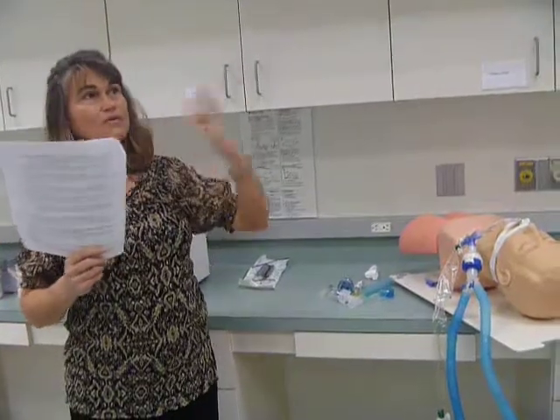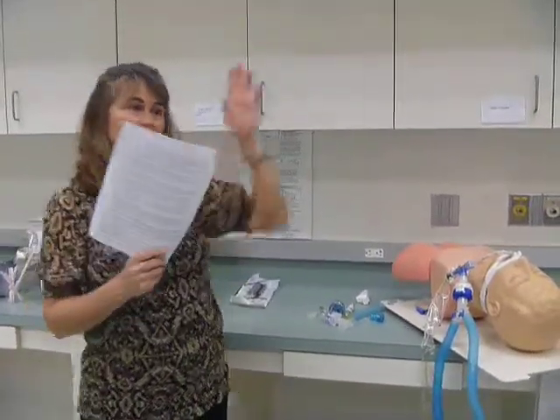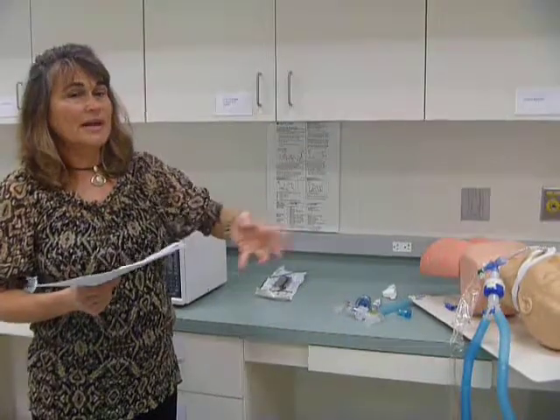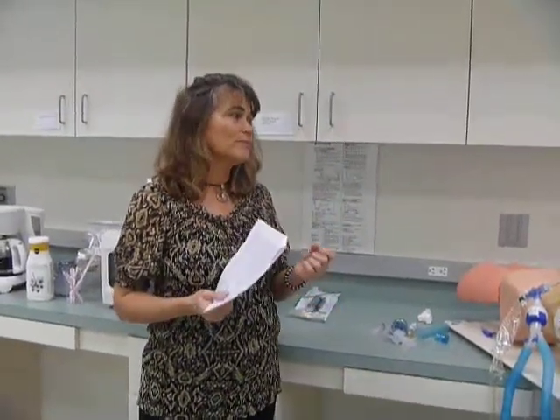When you breathe in, of course, you're breathing in room air, and there's almost no carbon dioxide in room air, so you'll see the waveform go down to 0 because there's no CO2. But then as you exhale the carbon dioxide from your lungs, you'll see the waveform climbing up. So I want you to be familiar with it so that you can recognize a normal waveform.